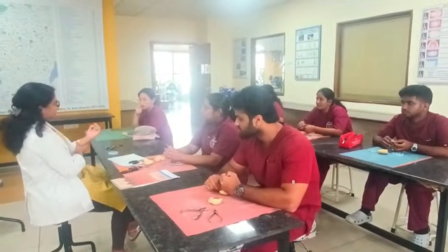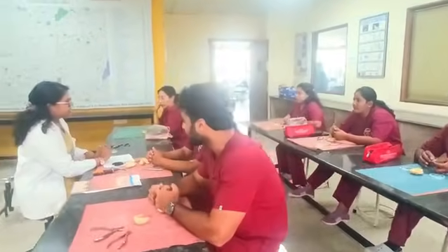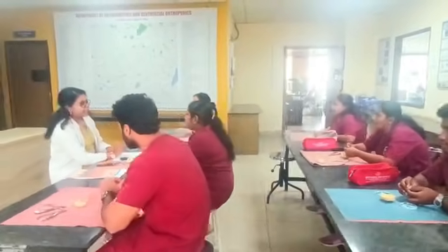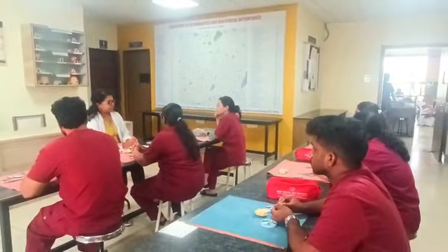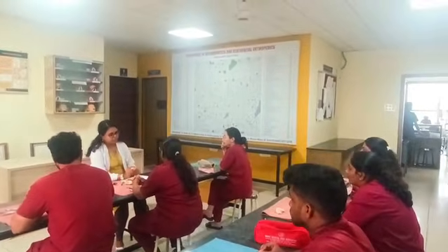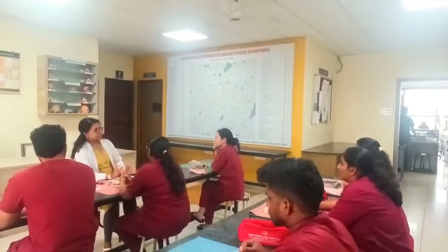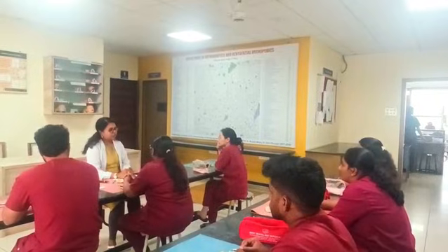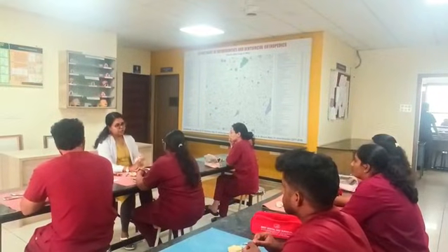Coming to the angulation of the bridge or the arrowhead, at what angle should it be placed? It should be placed at a 45-degree angle. So what is the size of your arrowhead? Your arrowhead size is generally 3 mm in length and 1 mm in width. Not in all cases does it have a fixed size. It depends upon the occlusal width of the teeth. Based on the height of the teeth, you are going to vary the length of your arrowhead.